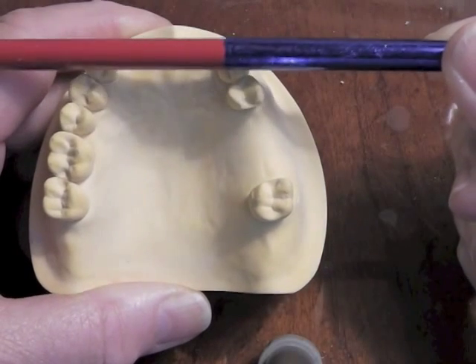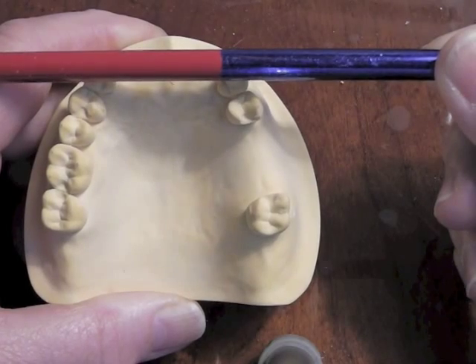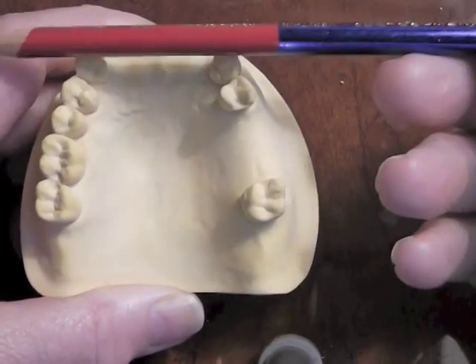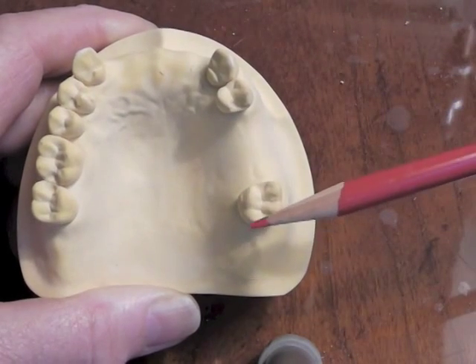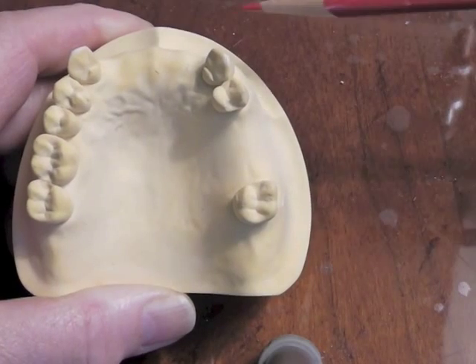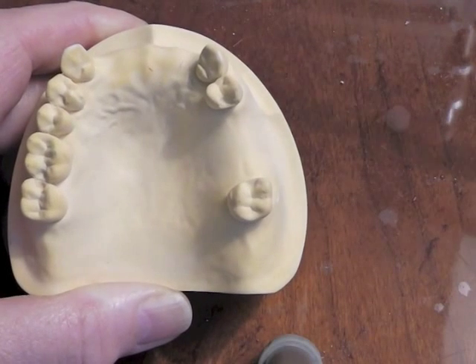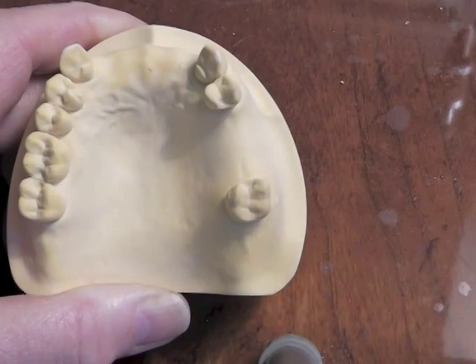We have a fulcrum line at this part of the cast. When the patient bites down, that partial denture is going to want to flip up in the back. When the patient eats sticky foods, it's going to want to pop up in the front. In order to prevent that, we're going to think about clasping next to or near that edentulous area, whichever is aesthetically and functionally the best.